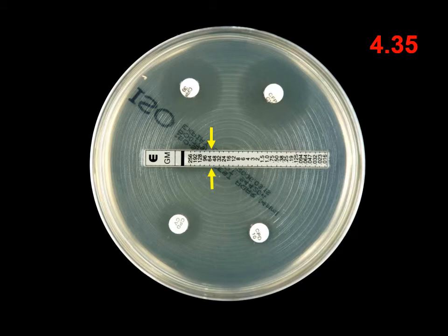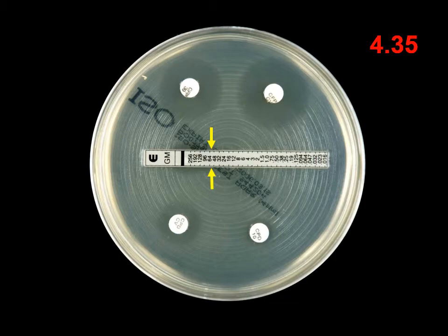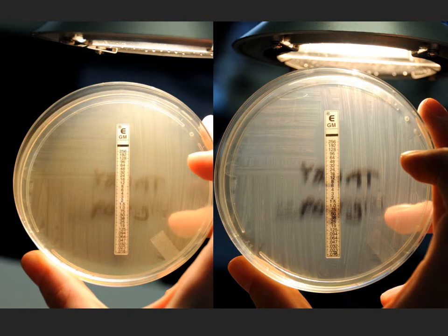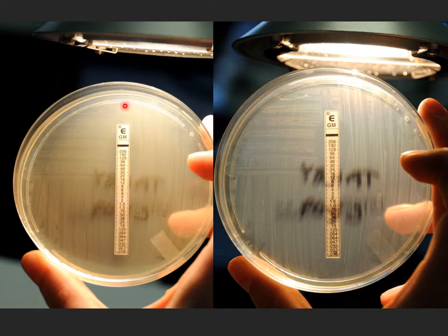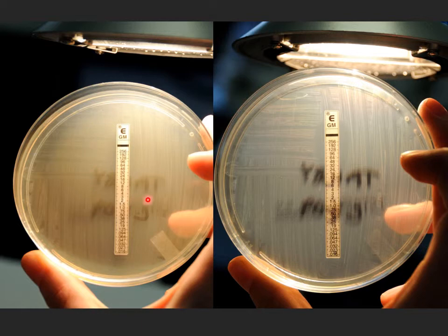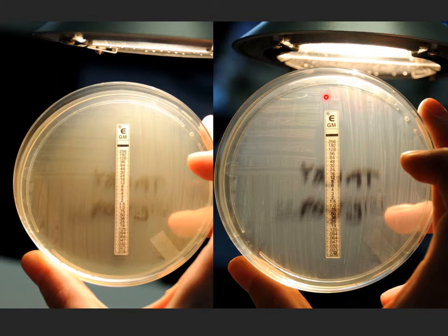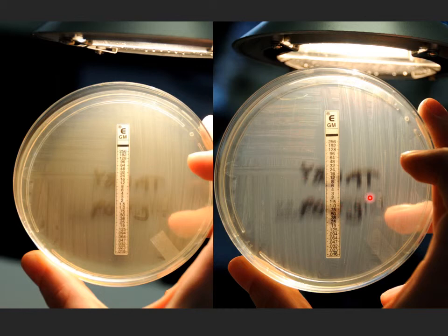The type of illumination has a bearing on the ease of reading the plates early. Reflected light, as used in time-lapse photography, is not ideal. Both images shown are of the same plate, taken minutes apart. On the left-hand side, the plate is illuminated with reflected light, making it difficult to discern the ellipse. On the right-hand side, the plate is illuminated with transmitted light, making viewing of the ellipse much clearer.